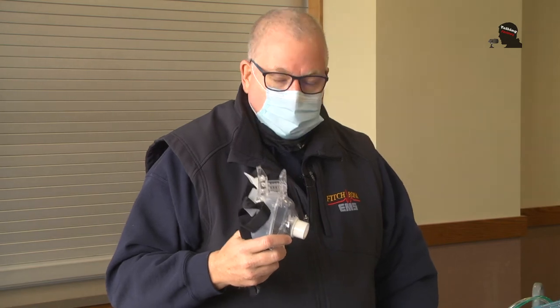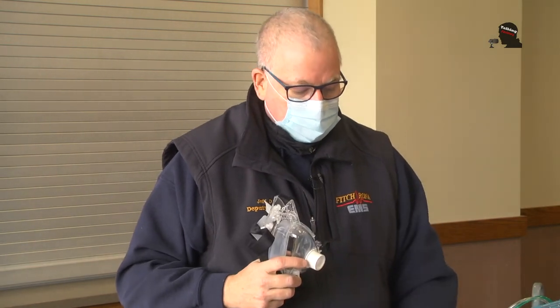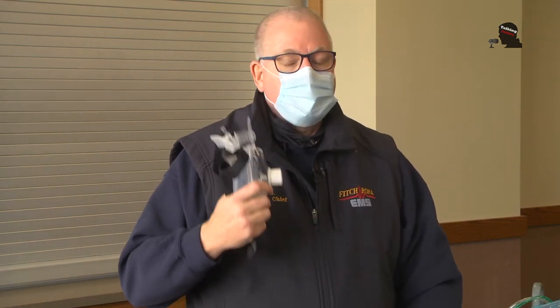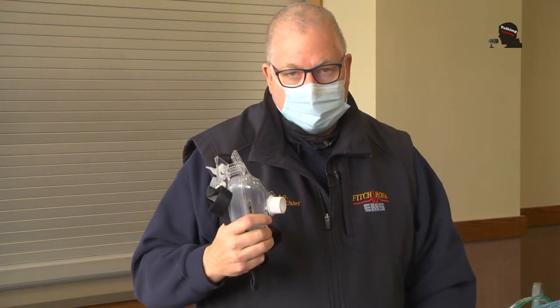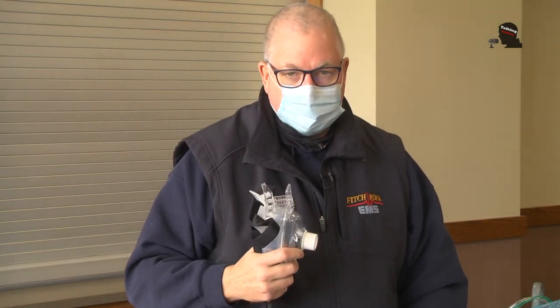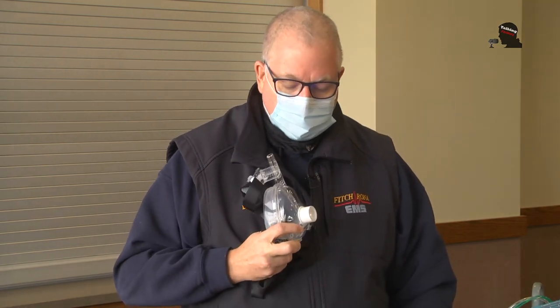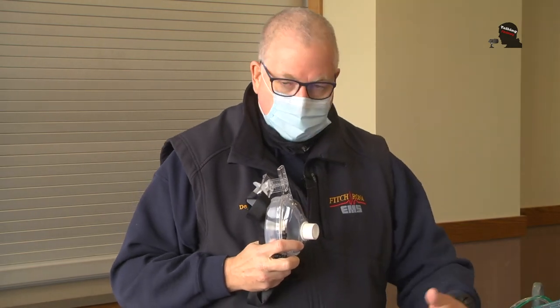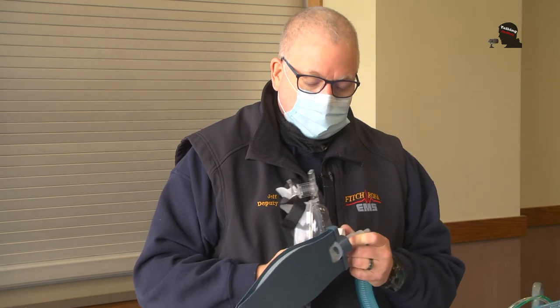The ventilator allows us to make that switch, and I think that's really important especially during COVID, where we can put somebody on BiPAP. It's an enclosed system with an enclosed circuit and they can breathe on their own — it's a little bit safer for the providers as well. A mask similar to this one is what we use; we turn the machine on, it runs through the same checks, and then we hook it up and it provides that continuous positive airway pressure.